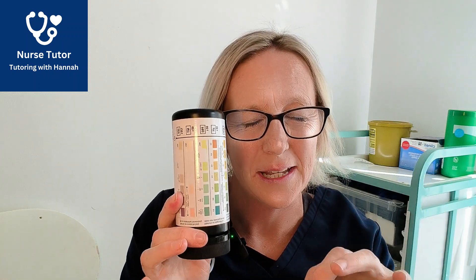Hello, welcome to this video. My name is Hannah. I'm a UK registered nurse, university lecturer and NMC OSCE programme lead. In this part of this practical video, I'm going to show you how to do your urinalysis dipstick and do some live readings and results so we can get used to that process.